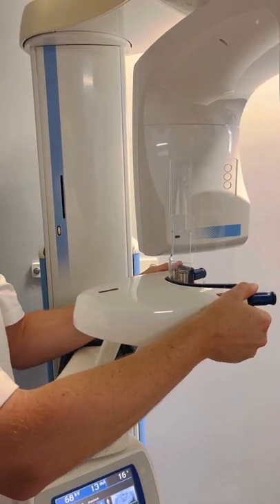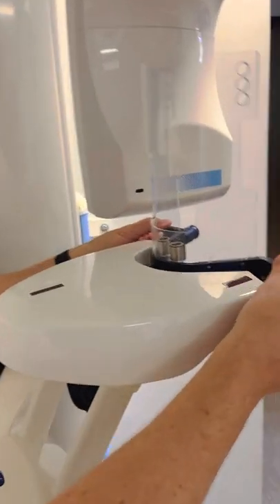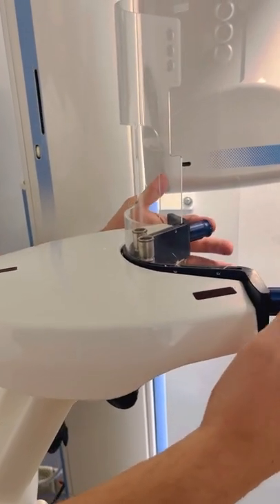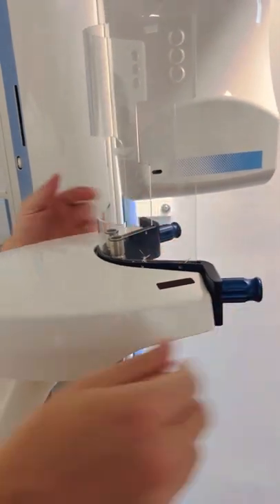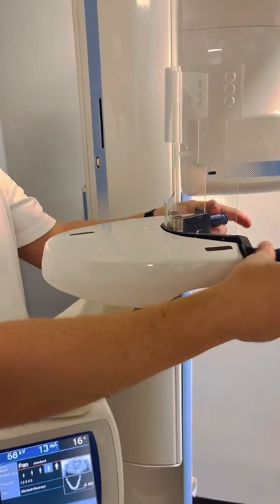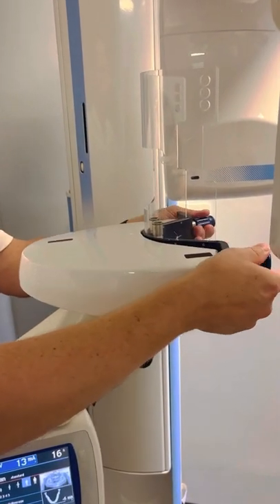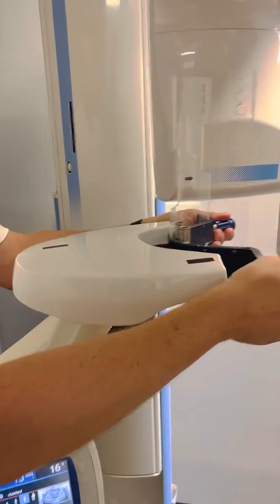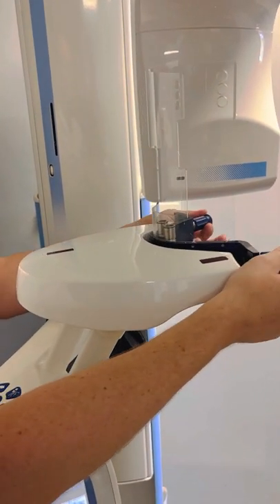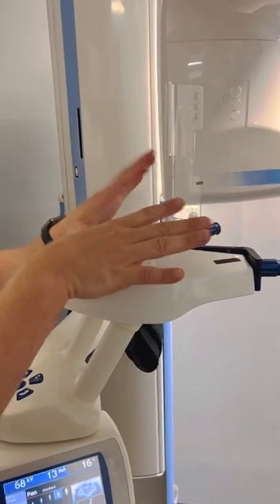Slide this in and then push these in — you'll hear them engage. I kind of push this down a little to guide it in. If you pull out, you can take it out again, slide it back in. I was pulling them out as they were inserting — slide it in like that and now it's secured.